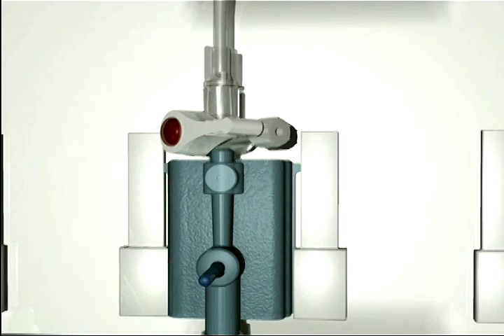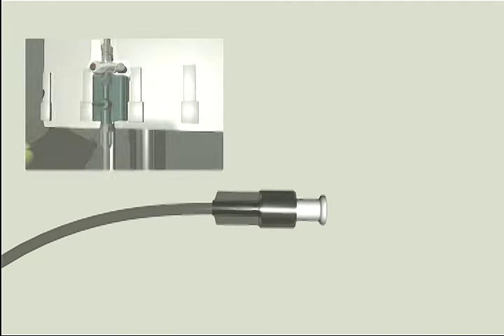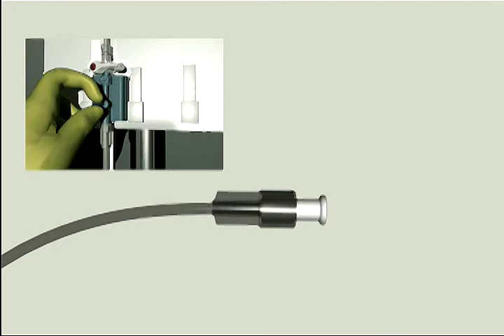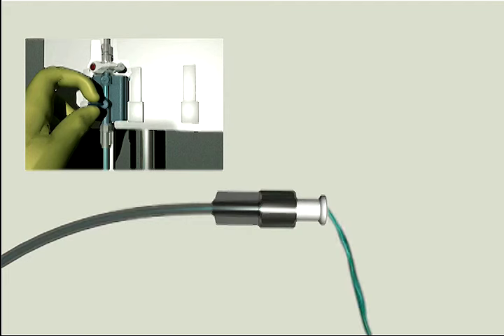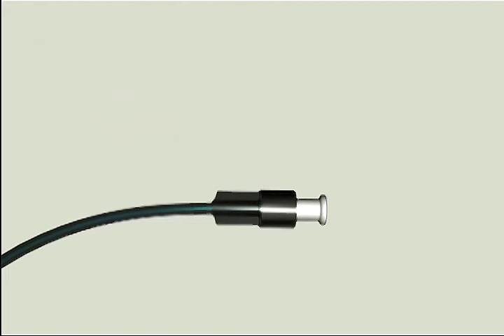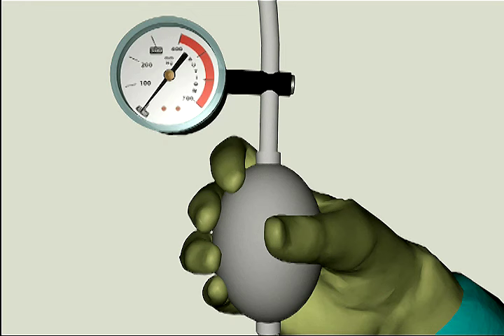Close the vent port by turning the stopcock towards the cap. Holding the pressure tubing in an upright 45 degree angle, pull the snap tab to flush the remaining part of the line through the end of the tubing.